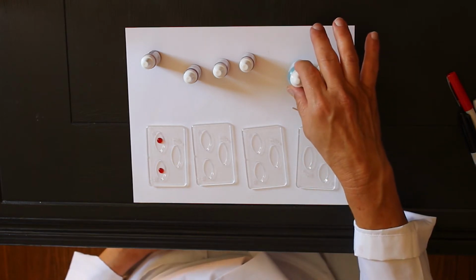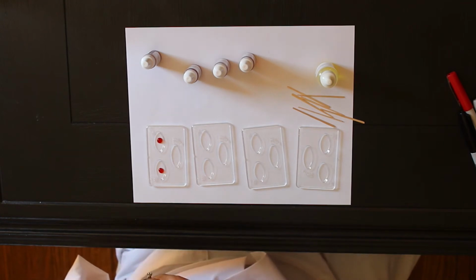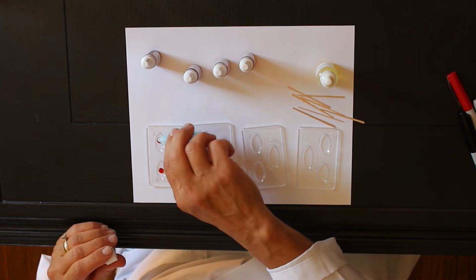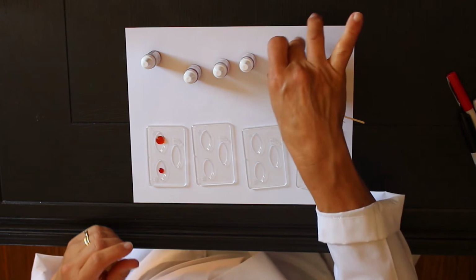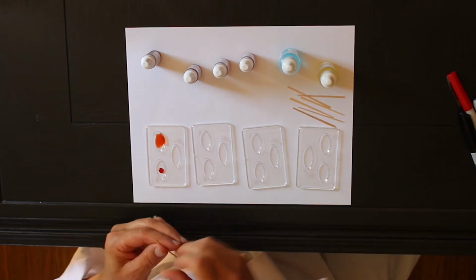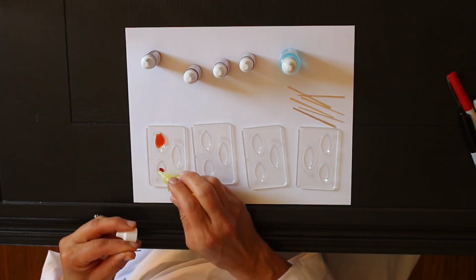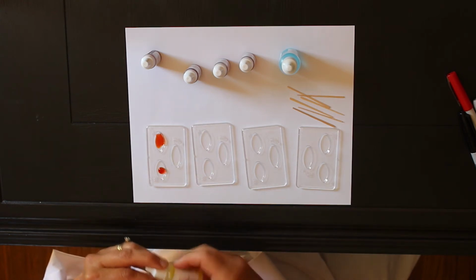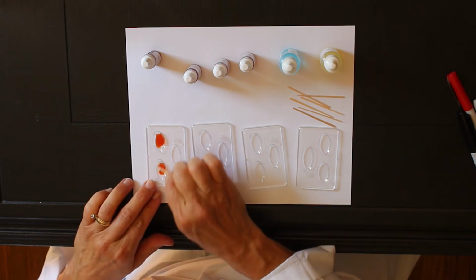Then we're going to take some anti-A serum, and this has A antibodies in it. We're going to put this into the well that says A on it to see if it clumps. So we put it on there, and then we mix it up with a toothpick. Then on the well B, we're going to put type B antibodies and see if they find any B blood to clump with. And now we're going to stir it with the other side of the toothpick so we don't mix it, and see what happens.